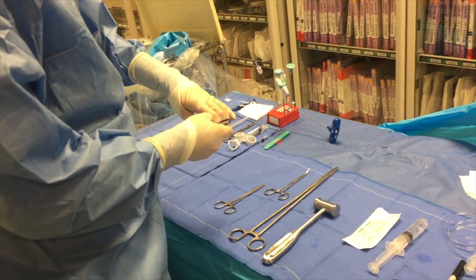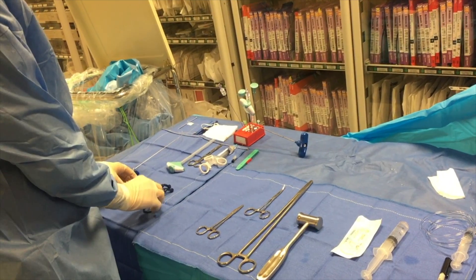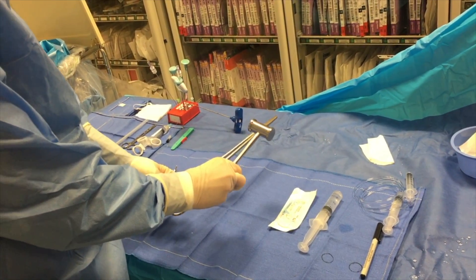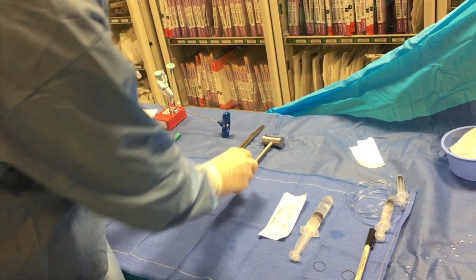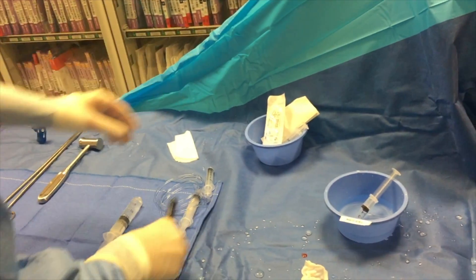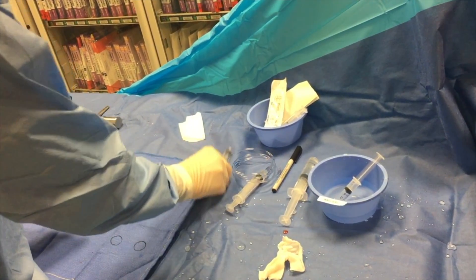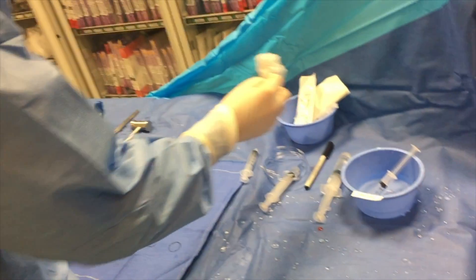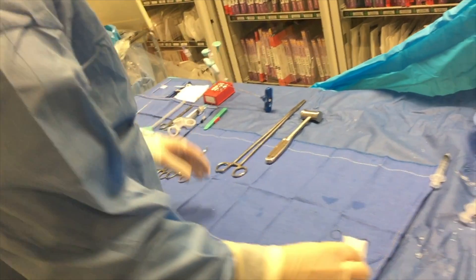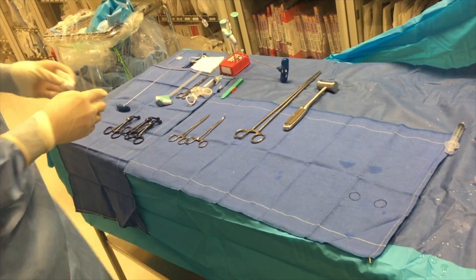The other thing you can do is just keep everything organized. These are all the plastic clamps, so have them all in one area. These are the other clamps, have them together. This is the equipment for the vertebroplasty, so you want to try to keep that together. These are some 2-0 proline sutures, keep these here for the end of the case. Keep the markers on the side, put all your syringes here, and keep the table clean and dry. Anything wet or used you want to throw away, and this is how you can be most helpful in whatever case you're in.